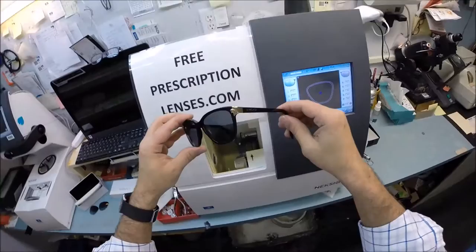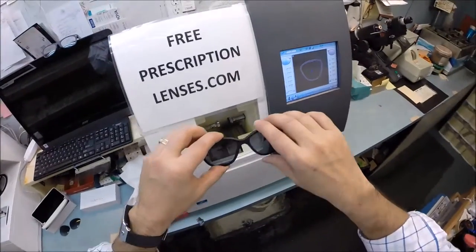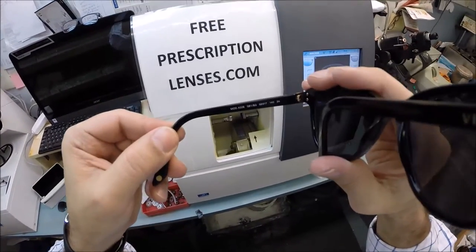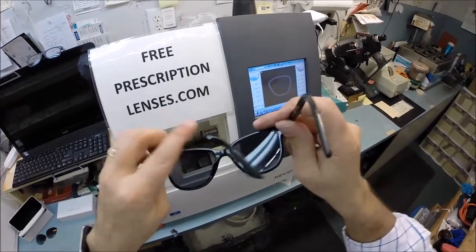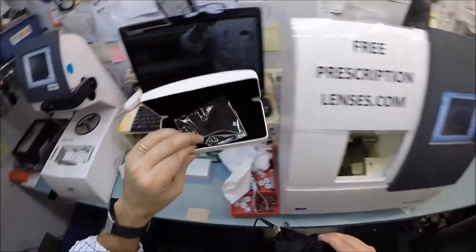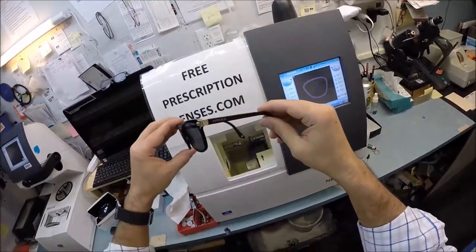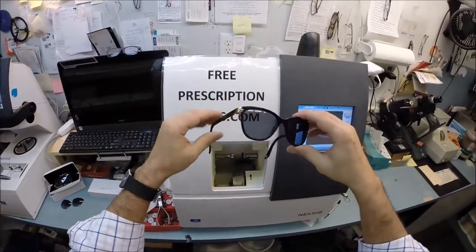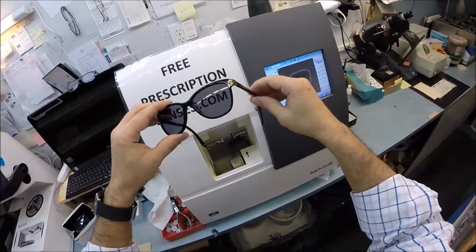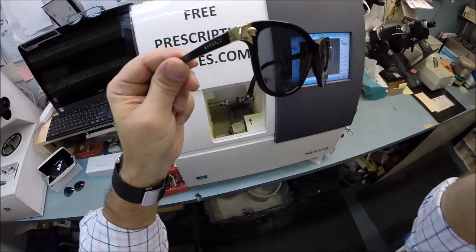Sharon in Burlington, I hope you enjoyed watching as I made polarized gray lenses for your Versace 4228 color GB1 in the 56 eye size. All Versaces are made in Italy. You get the white leather case with cleaning cloth, and I include instructions on how to care for your glasses, case, and cleaning cloth so they'll last you for years. I also include a photo request with every pair so you can be a Versace model and I can put your picture on the website. Hopefully everyone else has got the chance to see how I bring that love and feeling back to glasses. Thank you.